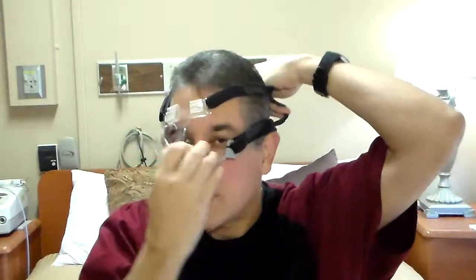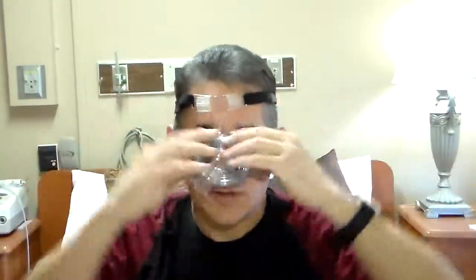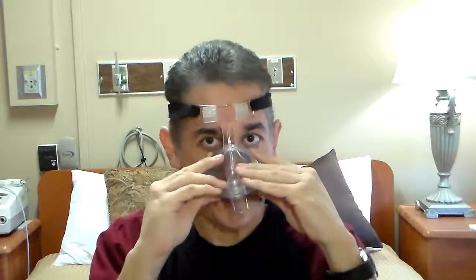It's low profile and it's got straps to hook and unhook. This can also be put on rather easy — just wiggle wiggle, get it all on, and connect your straps. And this is for that wider nose fit.